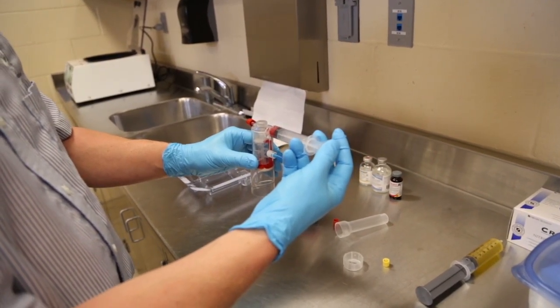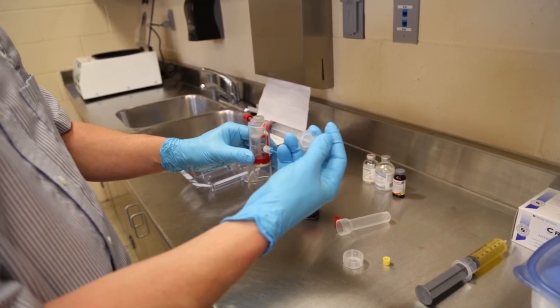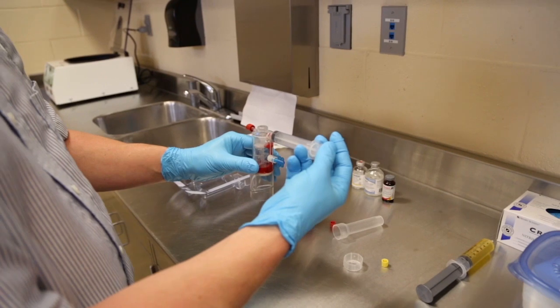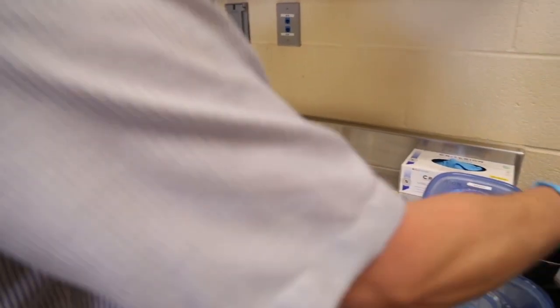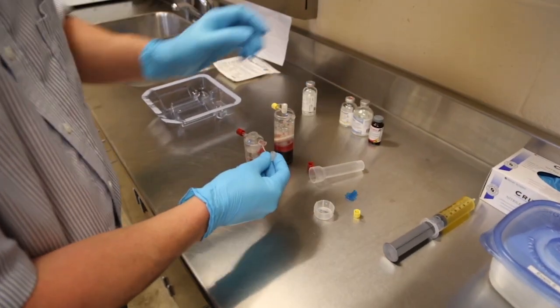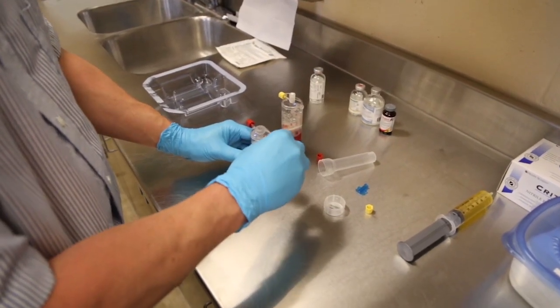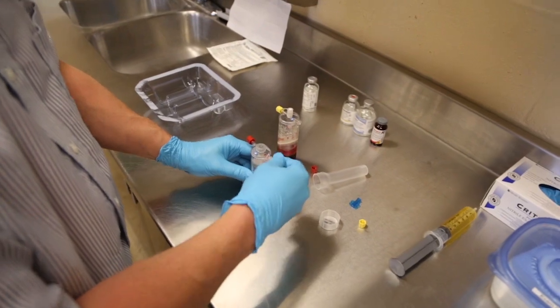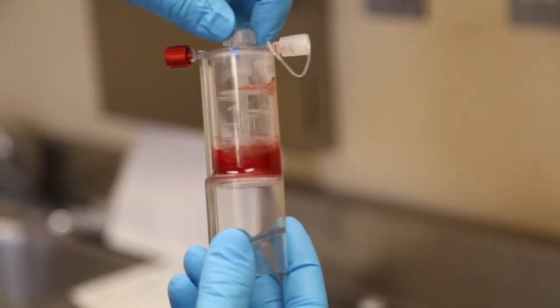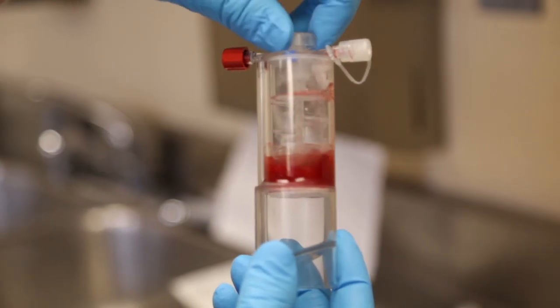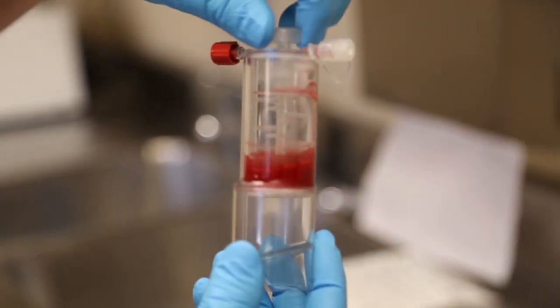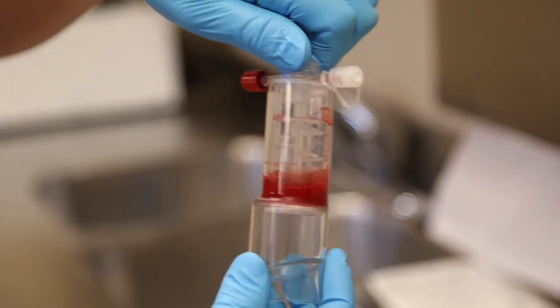Remove the yellow cap, number 1, attach the syringe, and slowly fill at a rate of 1 ml per second, saturating the beads. Remove the syringe. Remove the blue insert by unscrewing from the tethered cap, and then secure the tethered cap to port number 1. Ensure that the platelet-rich cell suspension is evenly mixed with the beads by using the knob on top of the concentrator device. Mix until the beads are fully saturated.